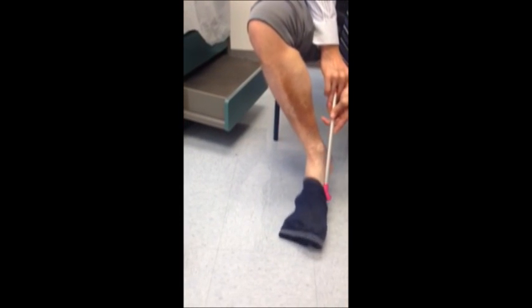In addition, they're very easy to remove as seen here, just pulling the stocking down toward the heel and then taking this remover appliance. And this is particularly important for people with arthritis or people that can't bend over.